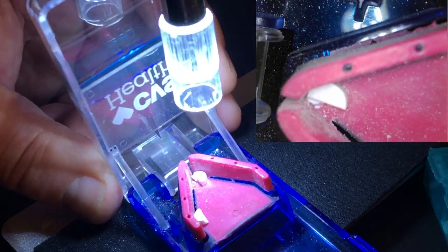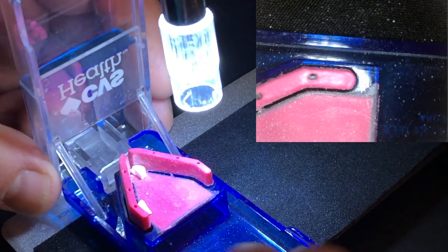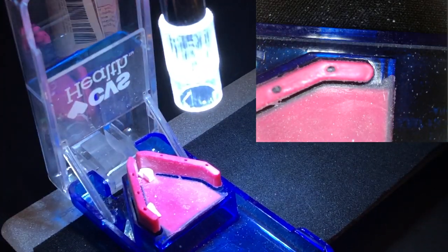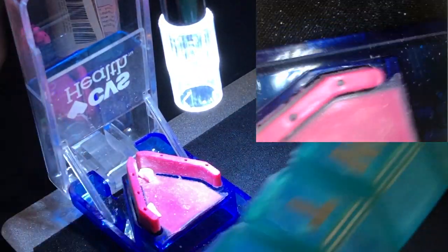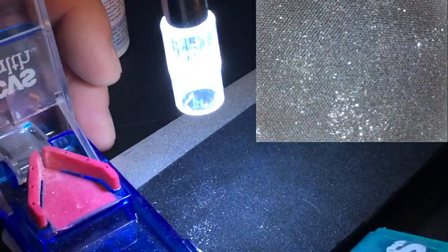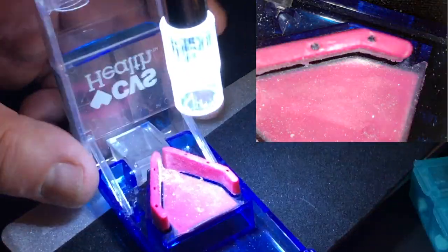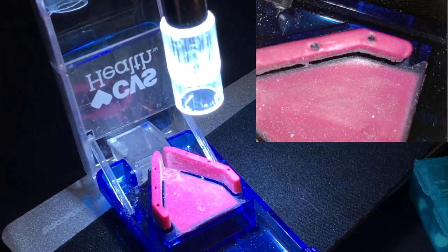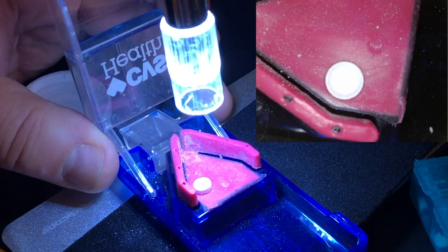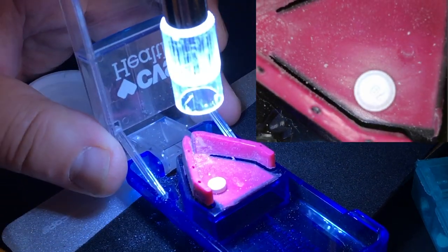Very good. There we go. Look at this. Clean cut. As you can see. So, this method really works. I wish you good luck with cutting your pills. And let me know in the comments below how you like this. What your experience is. Or if you have a better method. Maybe you have a better method to do this. I'm eager to hear.